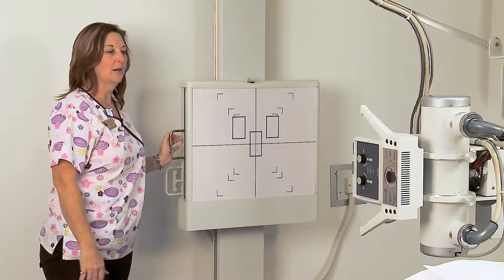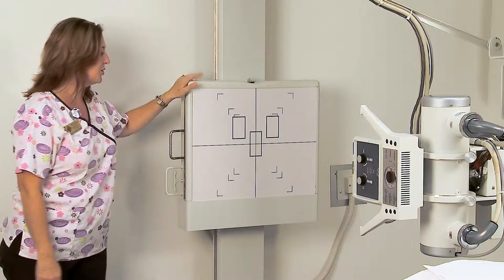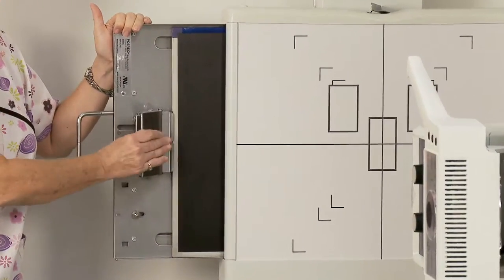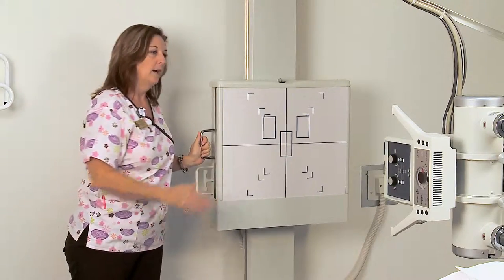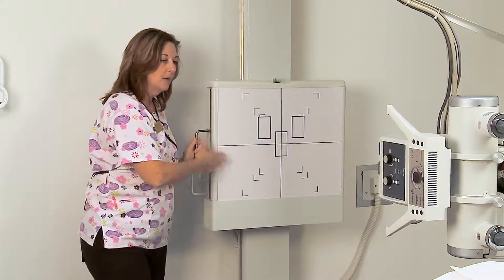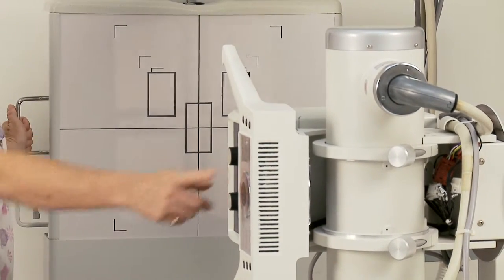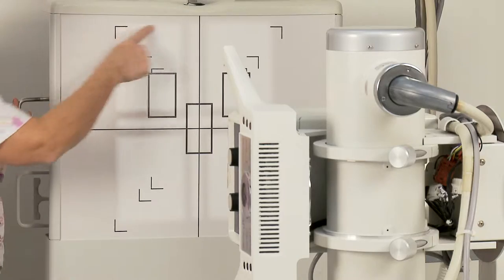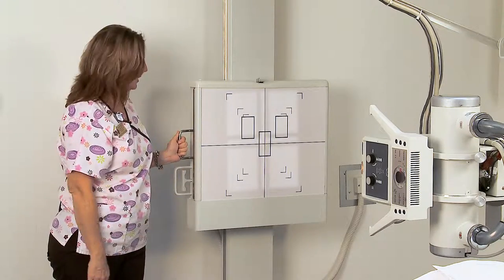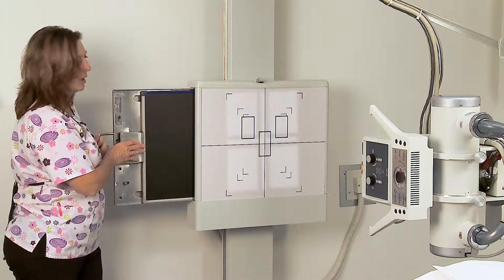We're going to conclude our discussion of x-ray equipment by talking about the upright wall bucky. This is just an upright vertical version of the table bucky — again this is your bucky tray, the same holding device. We can actually get a 72 inch SID by utilizing the upright wall bucky. We have turned our tube so it is in a horizontal position, with the light field already opened to the 14 by 17 inch image receptor in the bucky tray. Just as with the table bucky, we can place any size cassette and just adjust the collimator box appropriately.